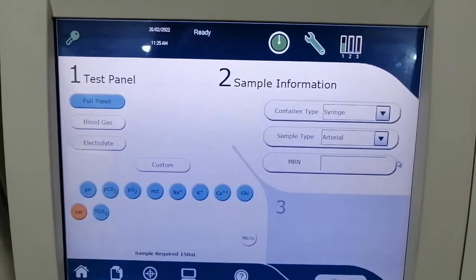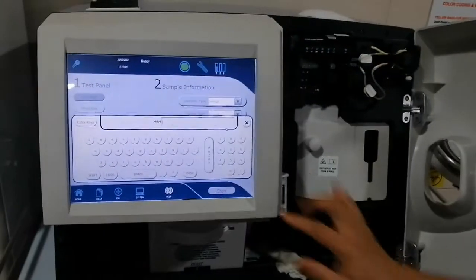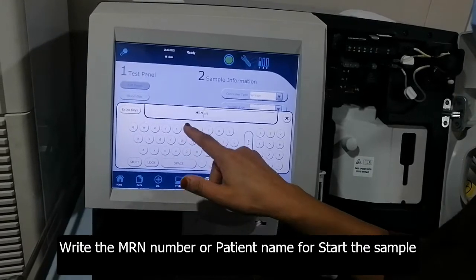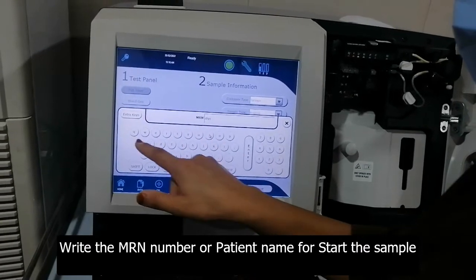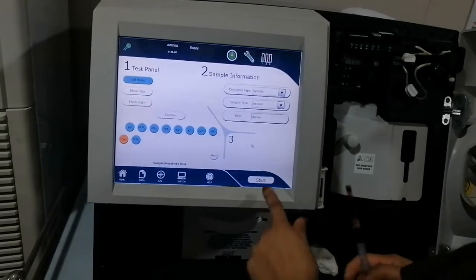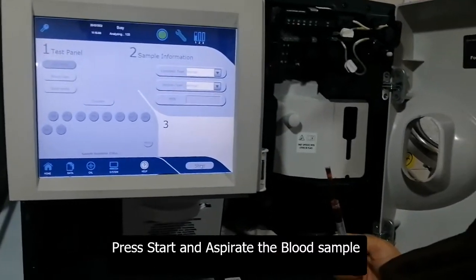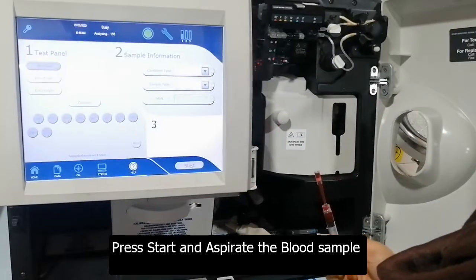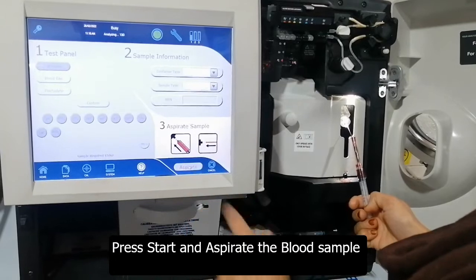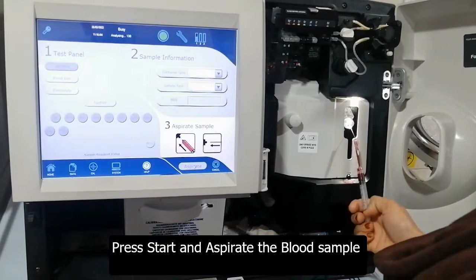Now we can run the sample. First, we put the MR number — our patient number — using this screen keyboard, then press Enter, then Start. The plunger of this machine pulls out and blinks a white light, so we insert the syringe and aspirate the sample.